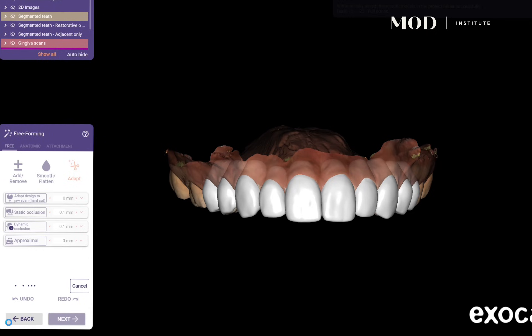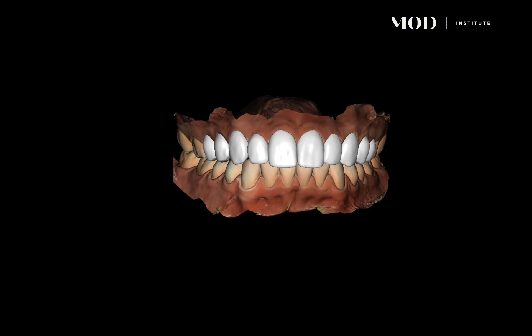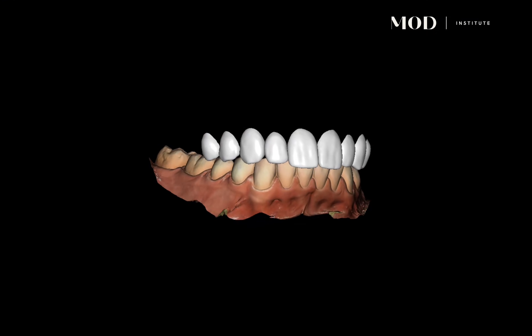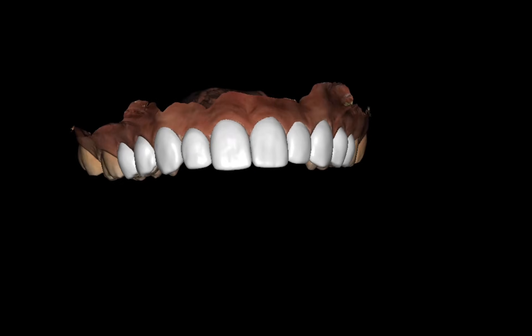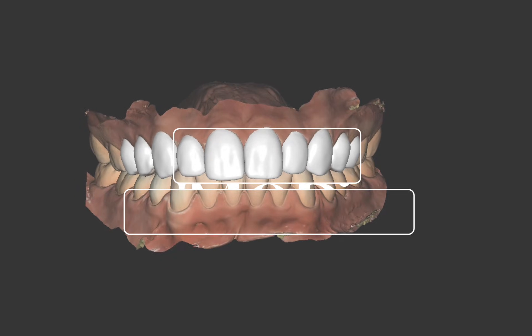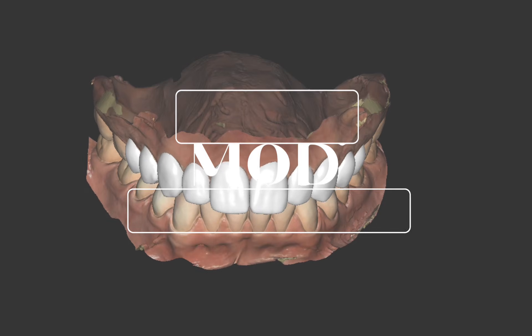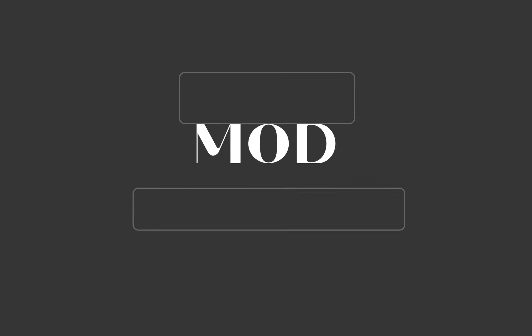This is basically doing very minor changes to the patient's natural teeth and putting just some ultra-thin veneers on the facials. We can see we have a result here that's ready to go in the printer. I hope you guys enjoy this — this is super powerful.